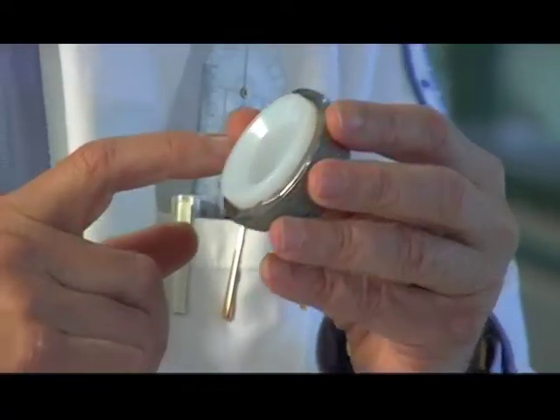In this case, this is a plastic insert — very, very wear resistant. This material wears at, and we've measured it, 0.7 of one millimeter in 10 years. So there's enough plastic in there to last 40 or 50 years.